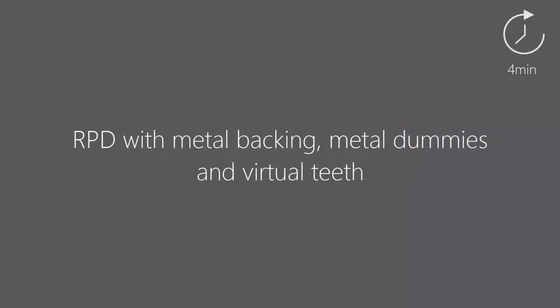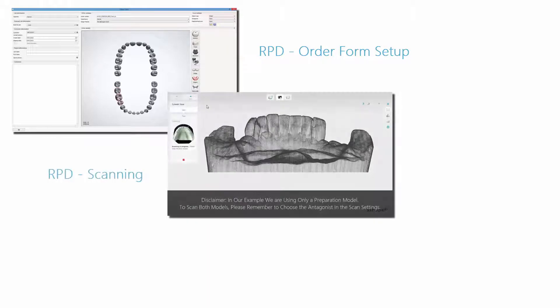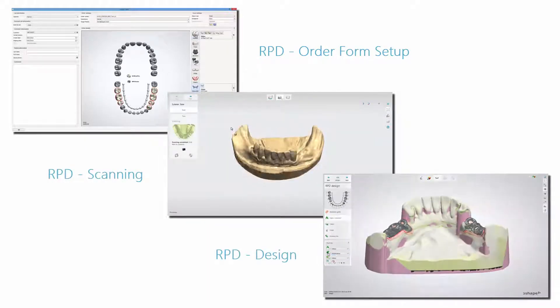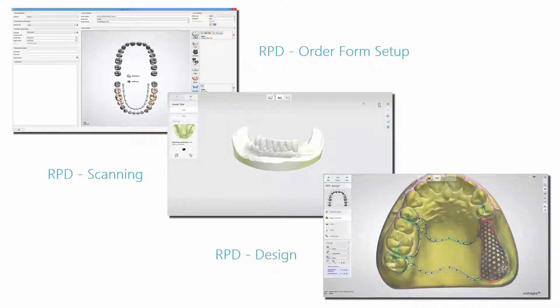This video will show you how to add metal backing, metal dummies and virtual teeth to an RPD design. We advise you to watch our RPD video series to learn more about order creation, scanning and design for this type of restoration.